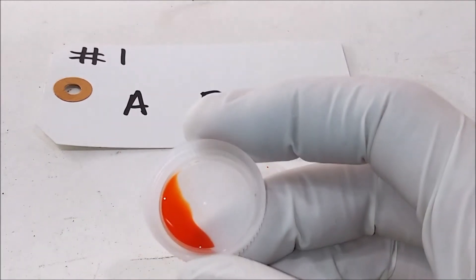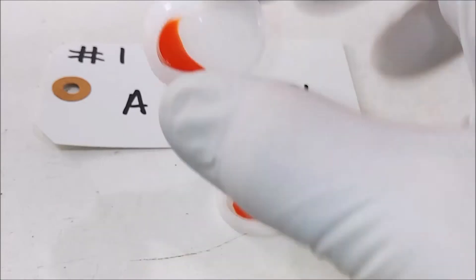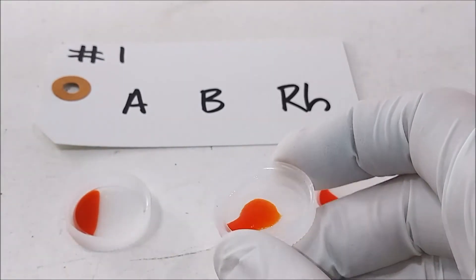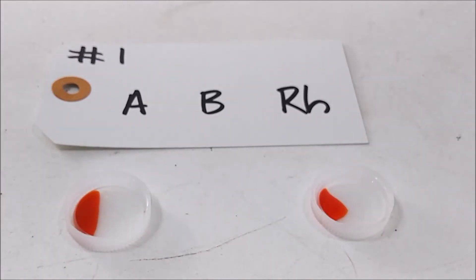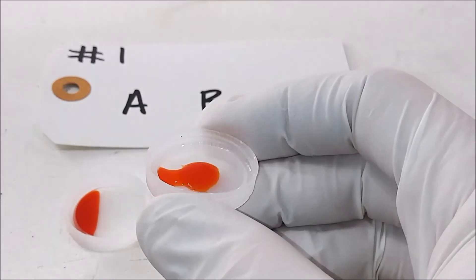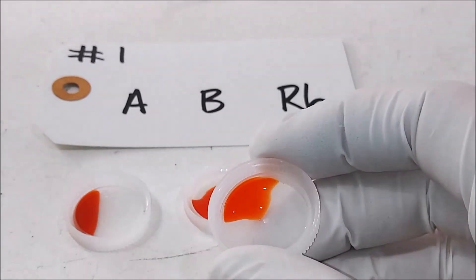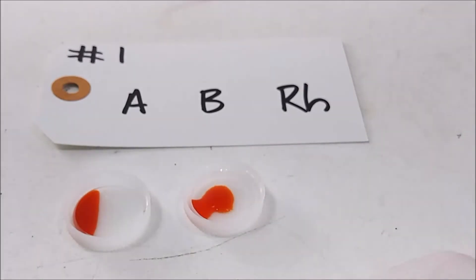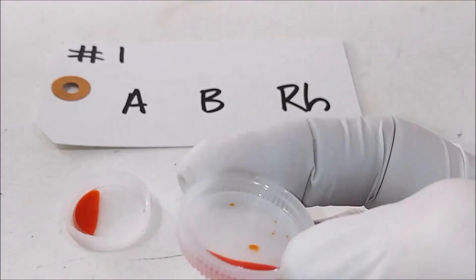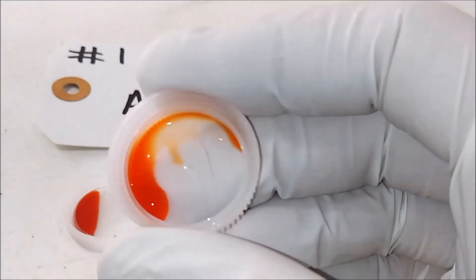So that is a negative — you can see the blood is still flowing freely. You can see that's clumping; it's agglutinating. And how about RH? That is still flowing just like A. So that is going to be B negative.